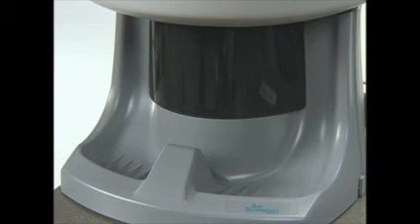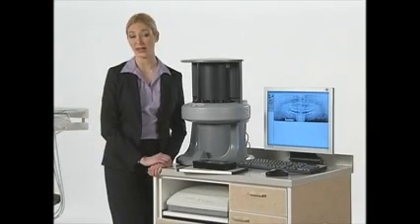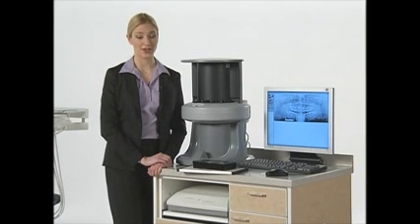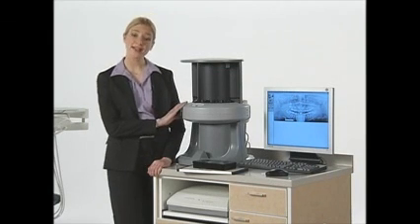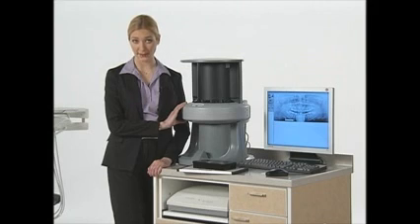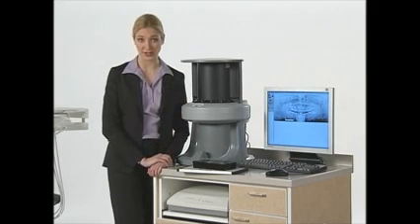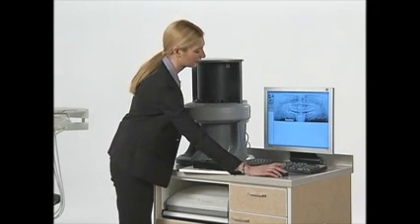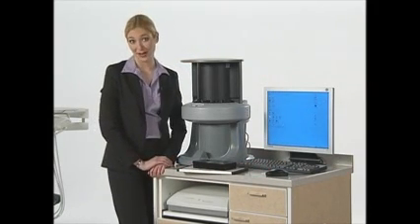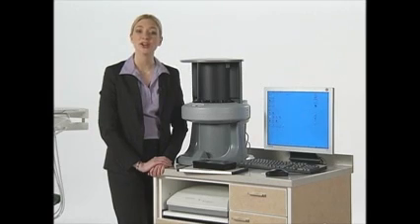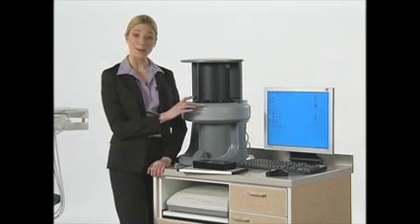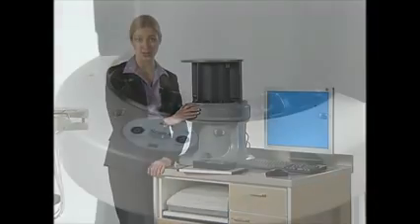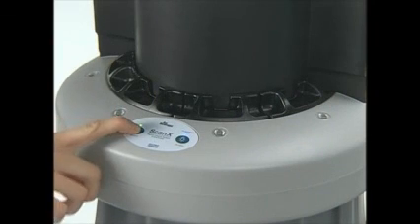The scanned and erased plate will drop into the receiving tray. You can prepare it and reuse it just like intra-oral plates. Now you've worked with both intra-oral and extra-oral phosphor plates. Your ScanX is intended to be left on all day. If you want to turn it off at the end of each day, first exit from your imaging software. Then turn off the power to the ScanX by pressing and holding the membrane switch for around two seconds until you see the green light above the switch turn off.